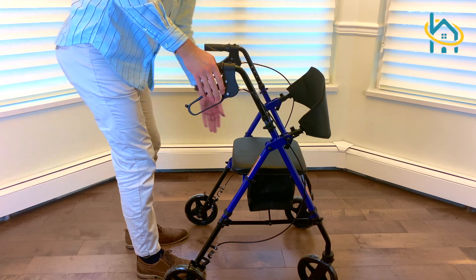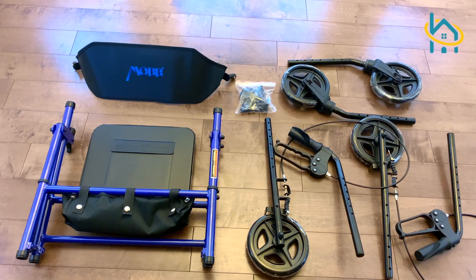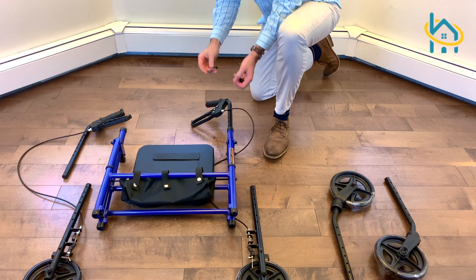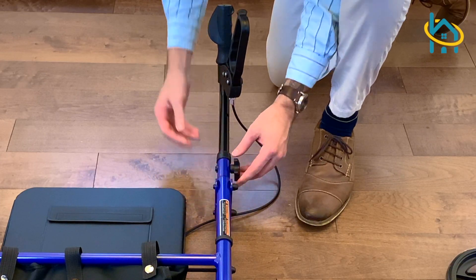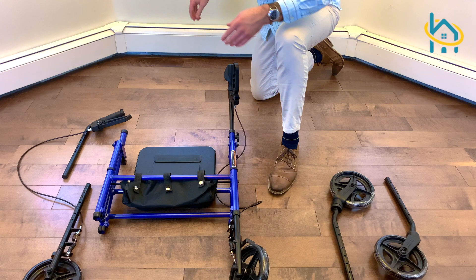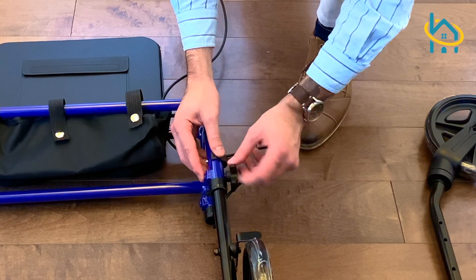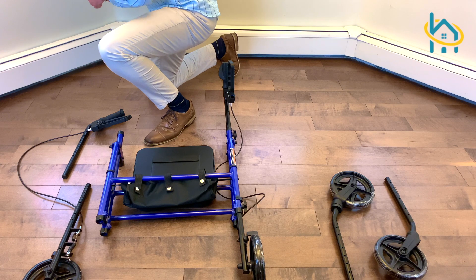Let's go over how to set up your rollator. First, lay out all the pieces and make sure to inspect them prior to assembly. Next, place a brake handle with the pre-assembled loop lock in the corresponding brake handle receptacle and adjust to the desired height. Use the height adjustment knobs to secure the handlebars in this position.